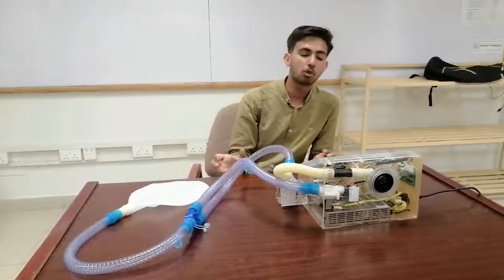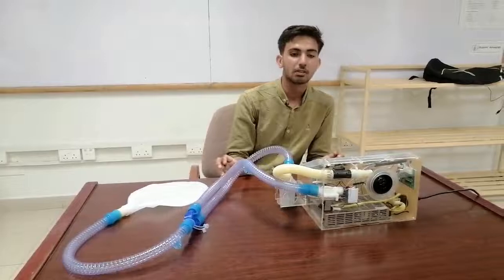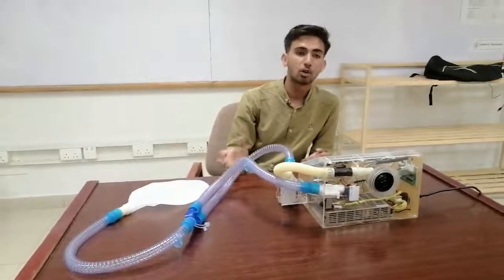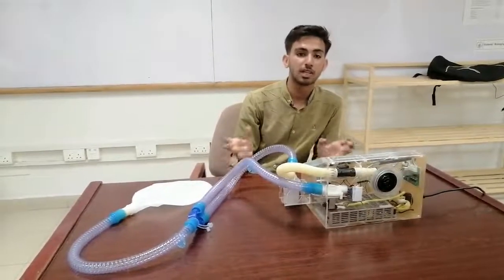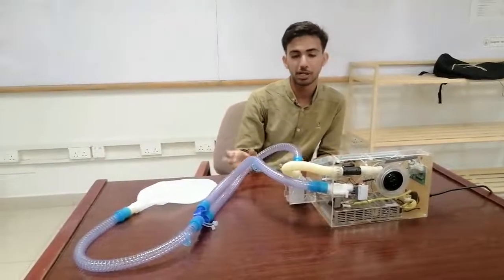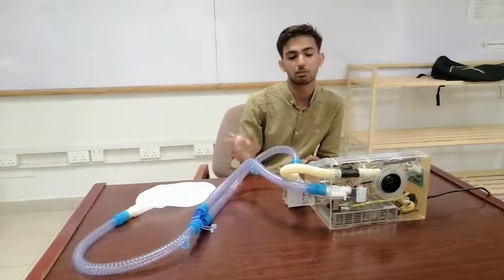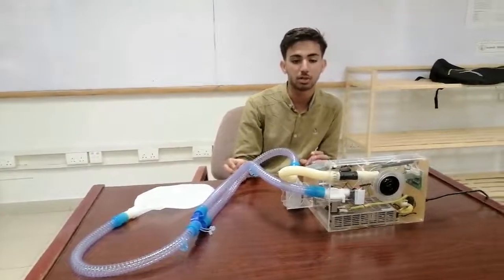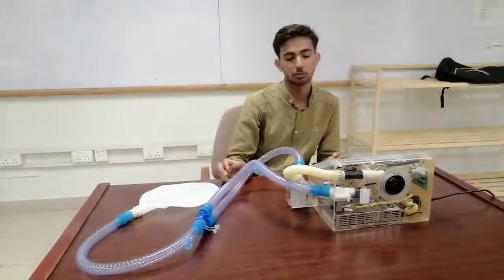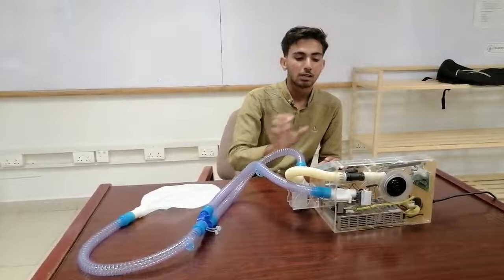CPAP is a mode of operation in which a fixed pressure is delivered. In the controlled mode, you can set the fixed number of breaths, tidal volume, and the inspiration-to-expiration ratio of the inhalation process.